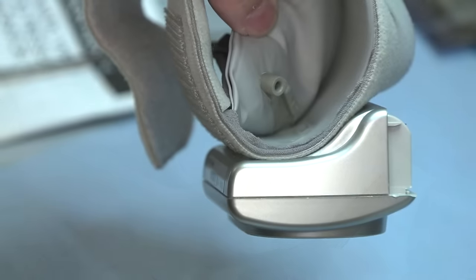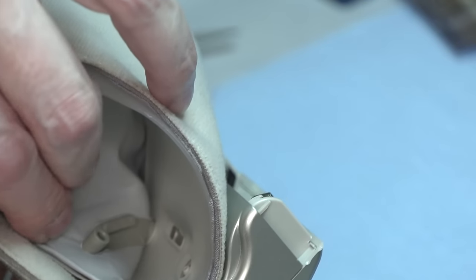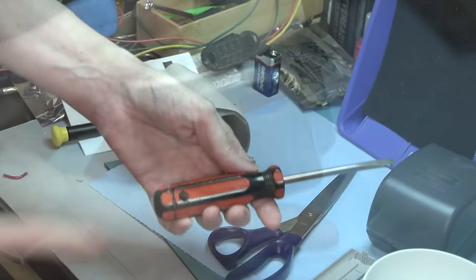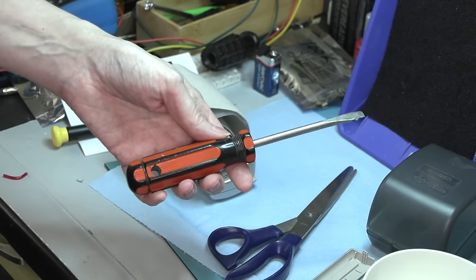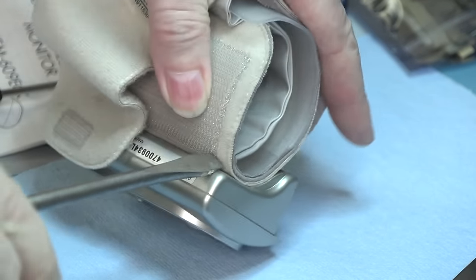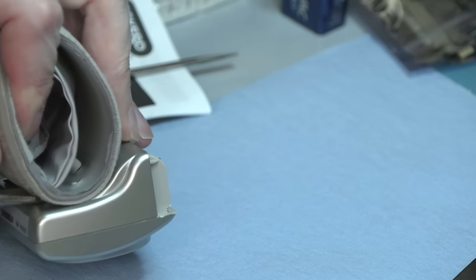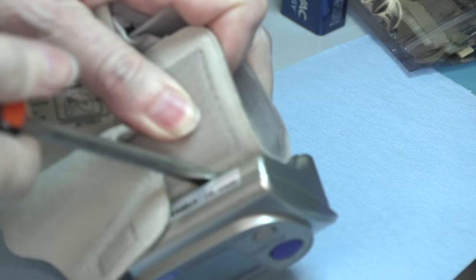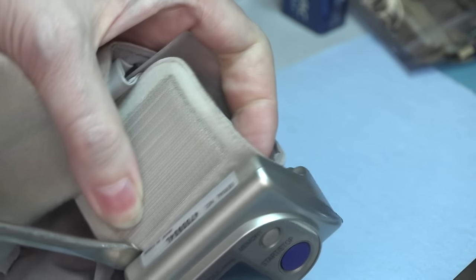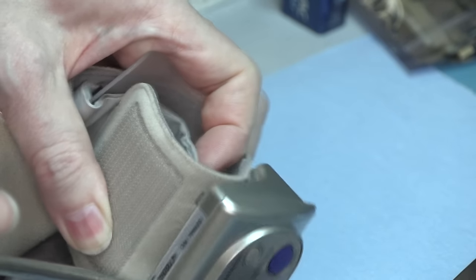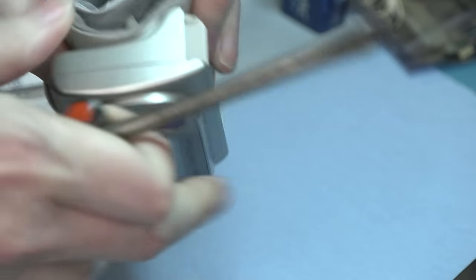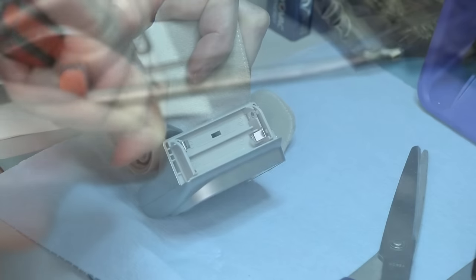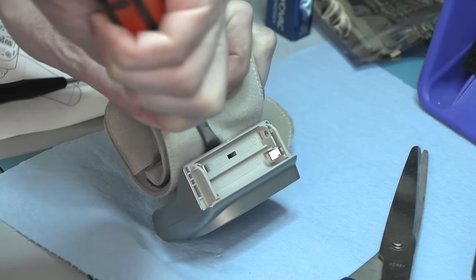All right, there's the attachment point in there where the cuff goes into the machine. Universal tool. Big red. Come on big red, let's go for it. All right. That looks like clips. Yep. Clips there. Another clip.